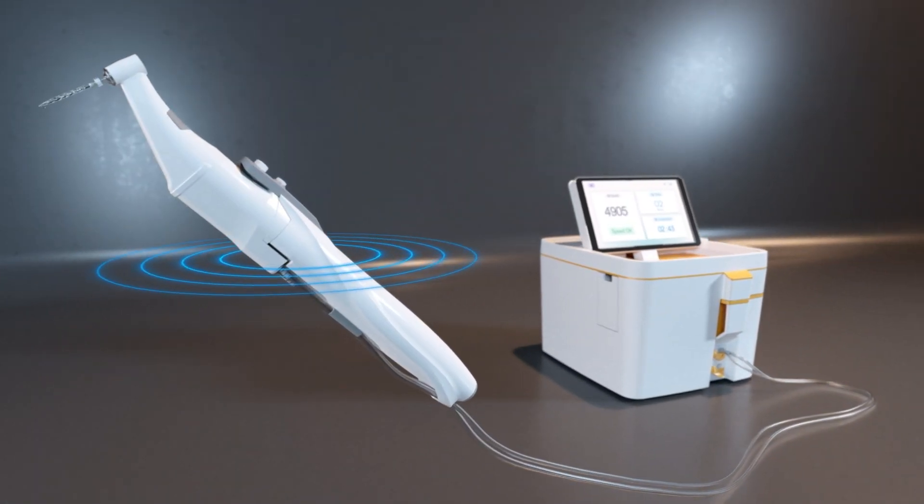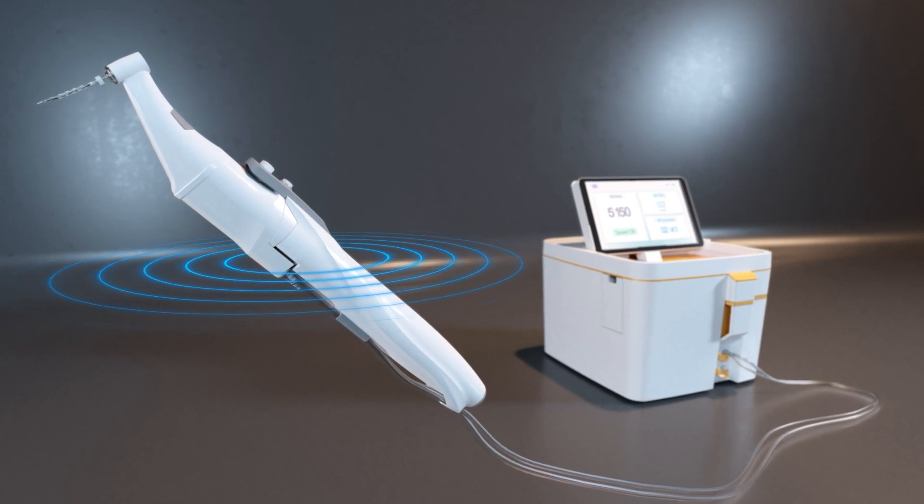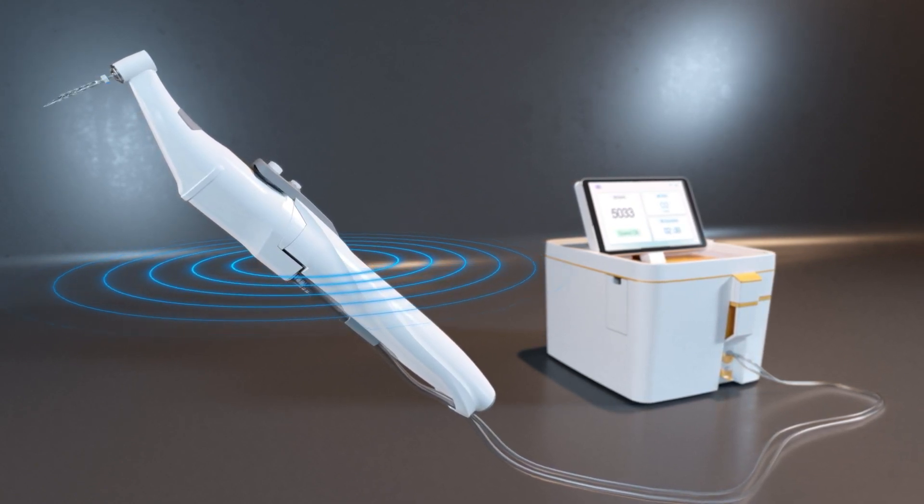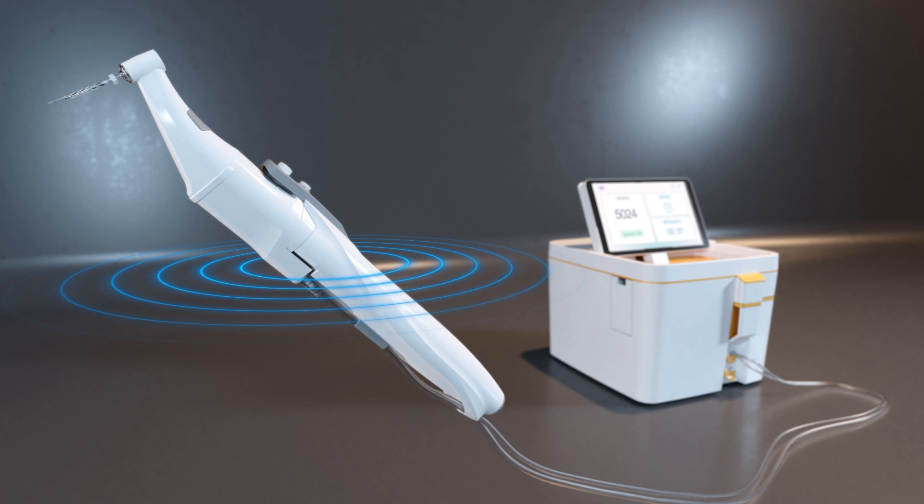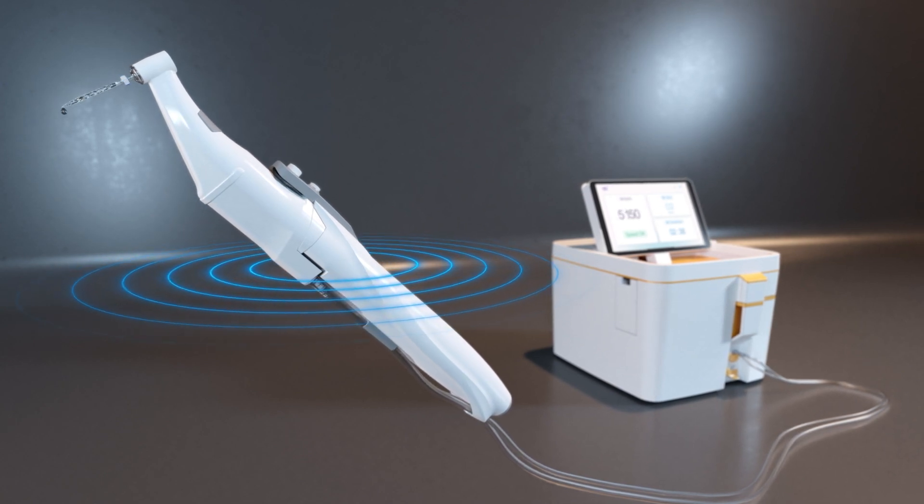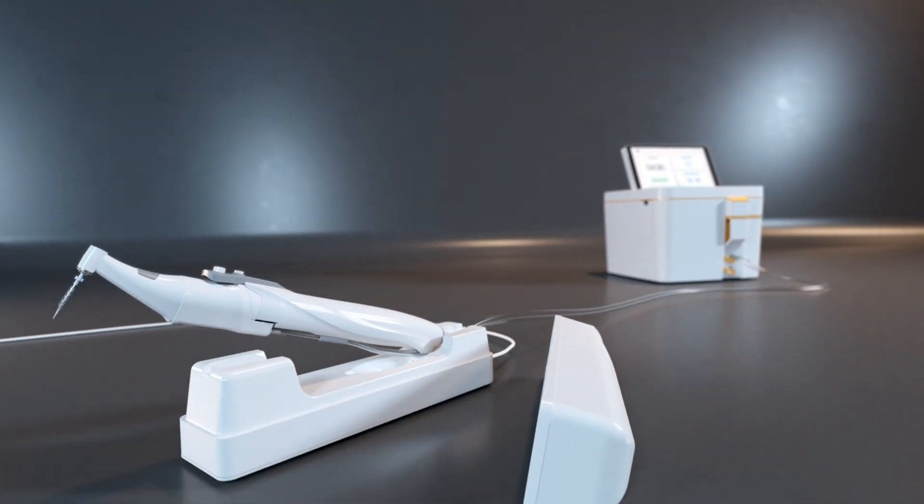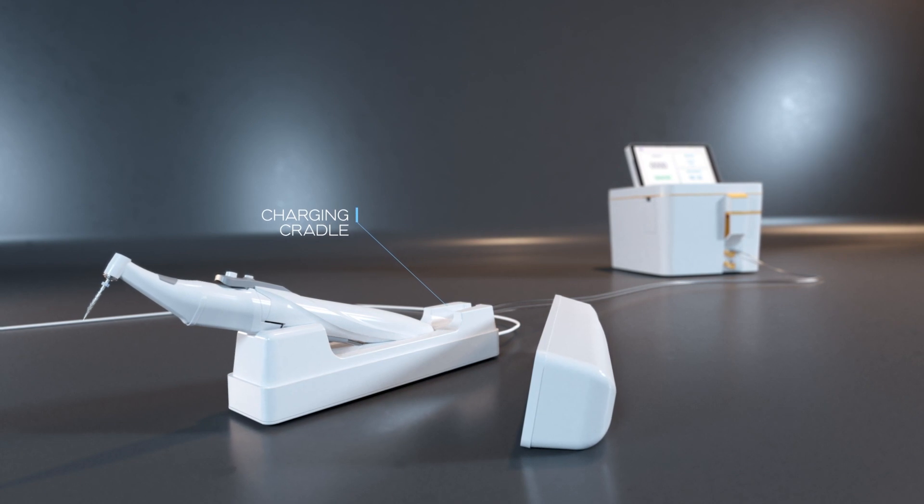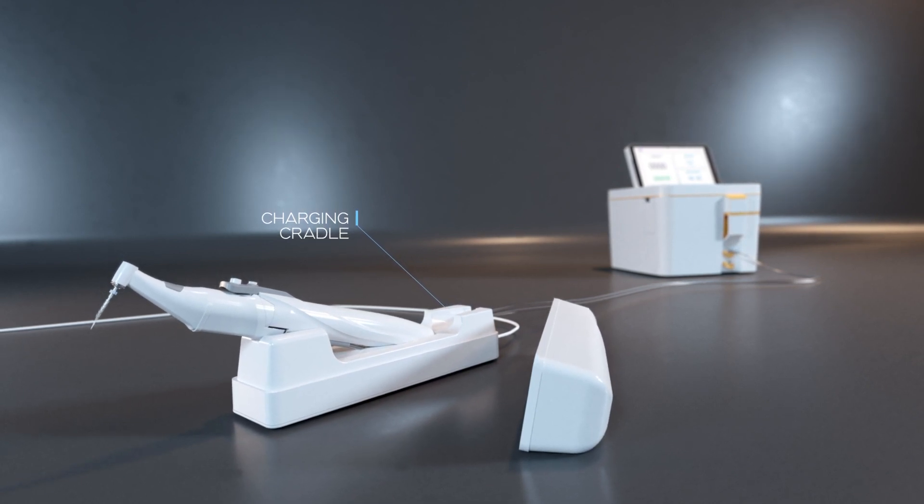A cordless motor provides an optional ergonomic alternative, eliminating the dependence on the dental unit and sending a wireless signal to the main device. It is recharged through its cradle and provides a simple way to operate the self-adjusting files at a constant speed.